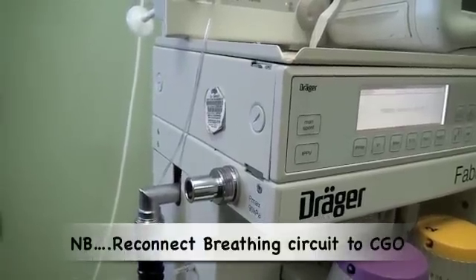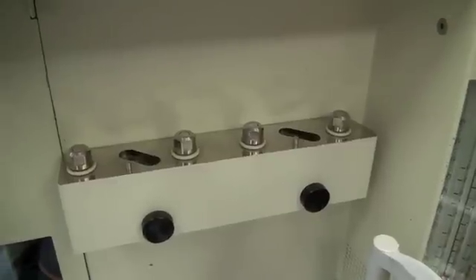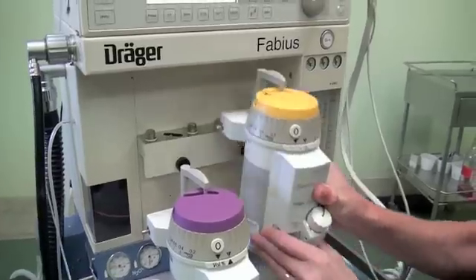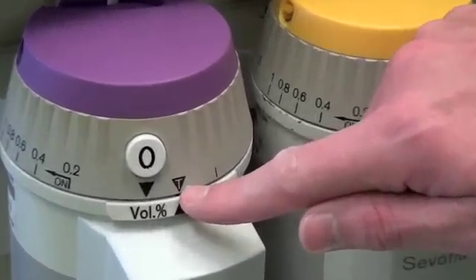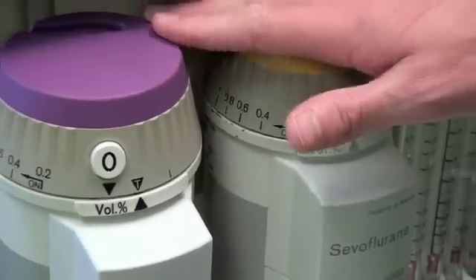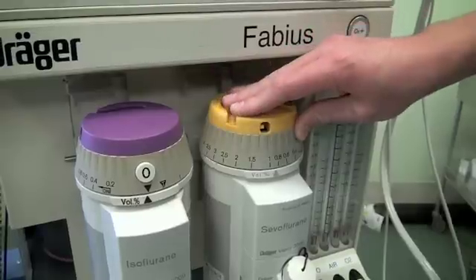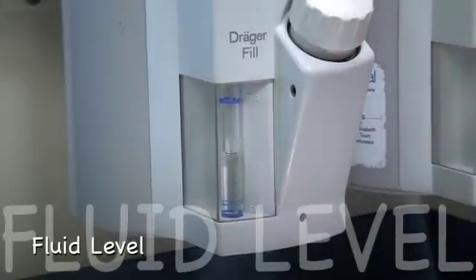Don't forget to reconnect your breathing circuit to the common gas outlet. Most anaesthetic machines have space for two vaporizers, situated on a back bar. It is important to check the O-rings and that the vaporizers are sitting flush on the back bar. These vaporizers have a transfer mode indicated by T, which allows moving a vaporizer onto or off the machine. When in place, the vaporizer is put into the neutral position. A built-in safety mechanism using a pin system ensures that only one vaporizer can be open at a time. One also needs to check the level of vaporizer fluid within each vaporizer.